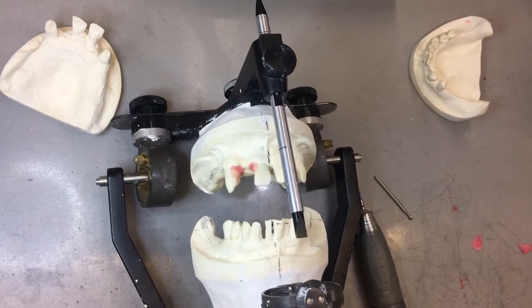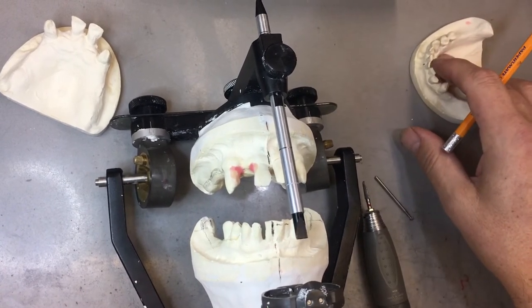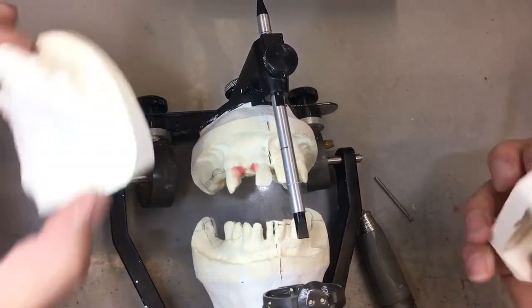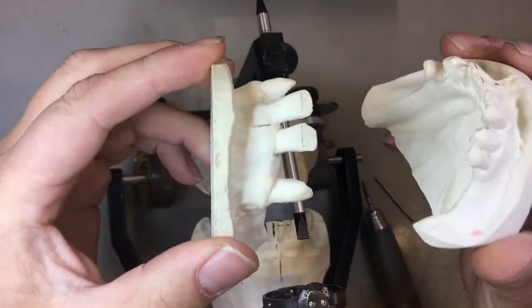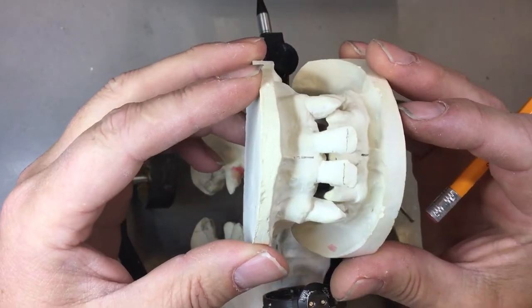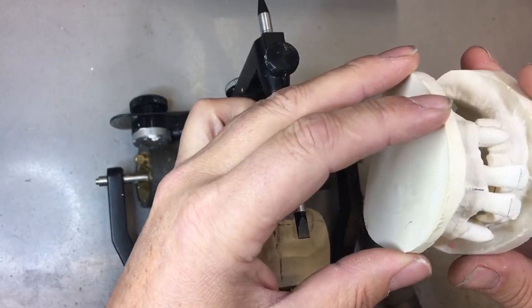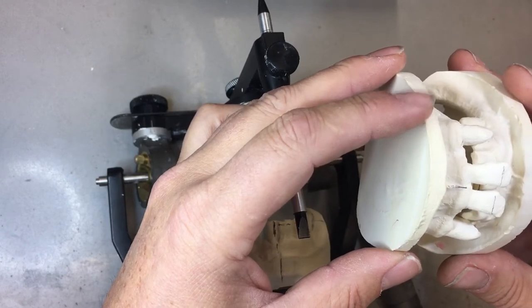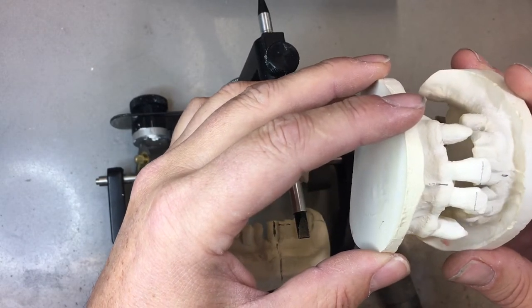Here we have project number four for this semester. This is going to be the immediate upper and immediate lower. You can see by hand articulating these models that the patient is obviously way over closed. The practitioner has to decide how much vertical we are going to open.